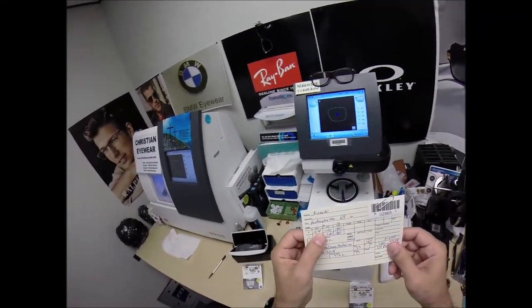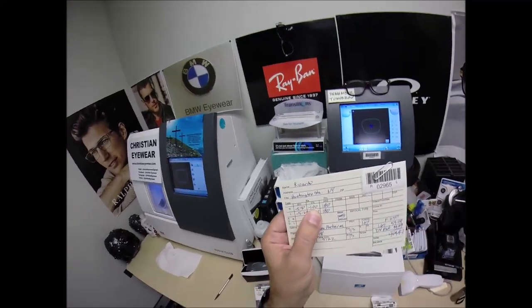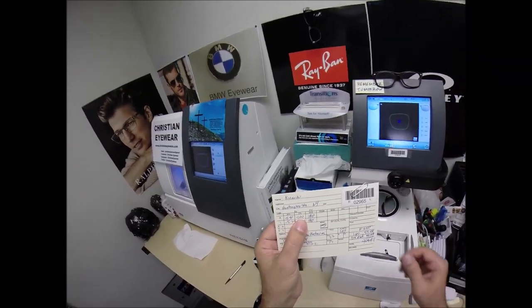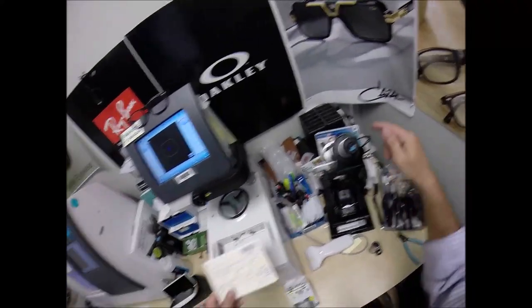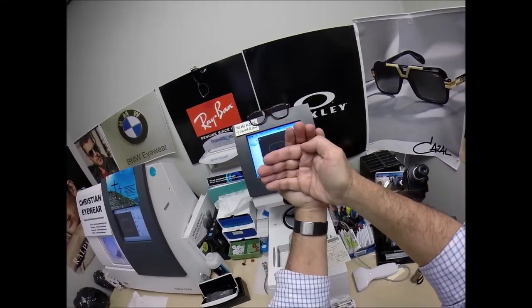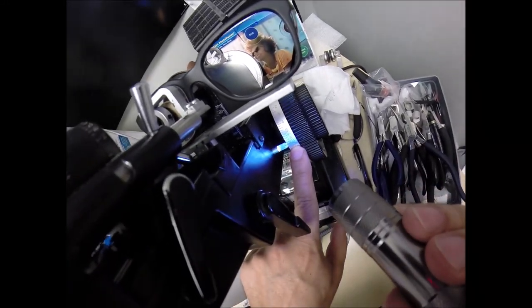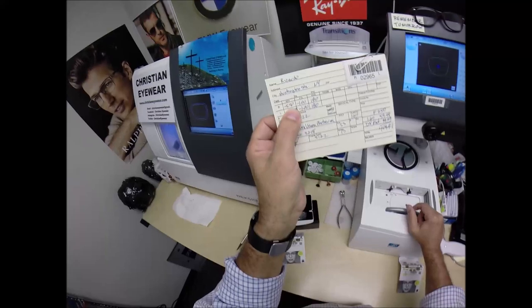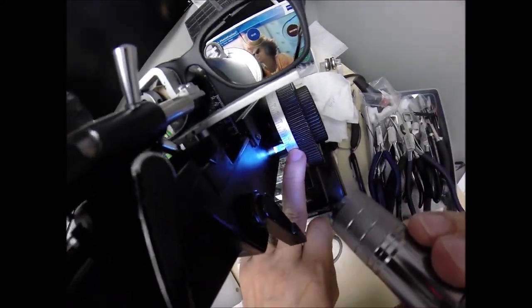Once you have five and a half diopters of nearsighted correction, once the image is the correct size, you have an additional one diopter of astigmatism correction. Uncorrected astigmatism makes sixes and eights look alike, or the letters P and F. Think of it as the fine-tuning knob — we're going to spin to 180. A straight line is 0 to 90 to 180; it's actually the same number as 0, but we just use 180. You have a minus 5.50 this way, a steeper curve — one additional diopter 90 degrees away — and it's how we rotate those to make them nice and crisp. And I'm on 6.50, exactly halfway between 6 and 7. How did we get there? Remember high school math — we add these two like signs together. If someone had borrowed $5.50 from you, then they borrowed another dollar, they would owe you $6.50. That's where I had 6.50 in the red.